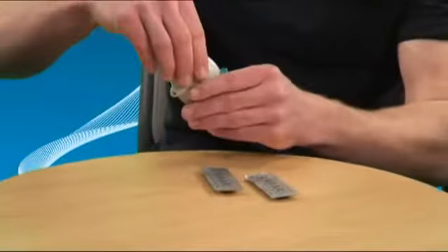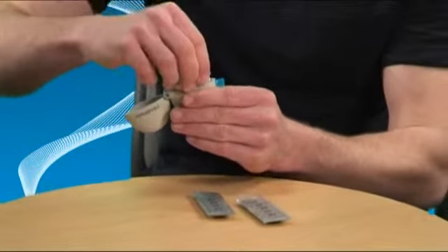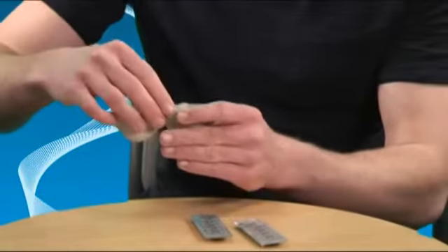Open the dust cap of the Handihaler by pulling it upwards. Then open the mouthpiece by pulling it upwards.